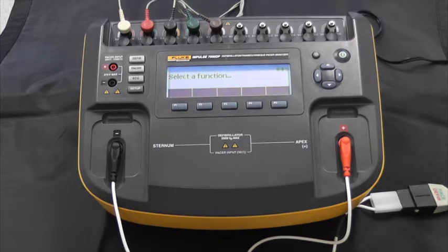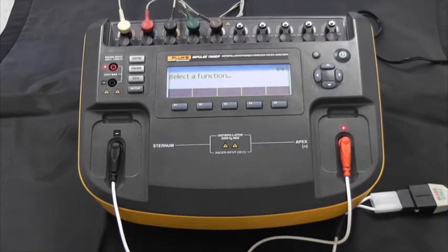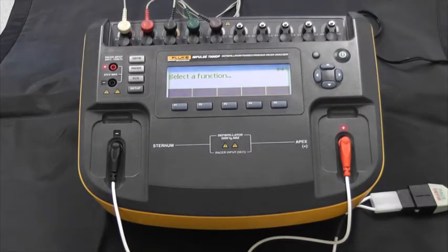If we want to talk about the ECG connection posts up here, these are designed for up to 10 ECG leads, which gives us a 12-lead ECG signal. They're really secure and easy to connect your ECG lead wires to — no problem there.